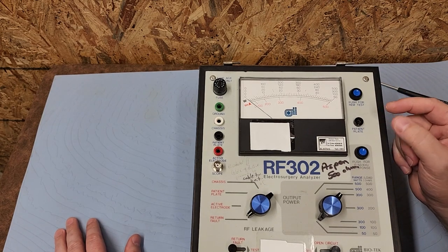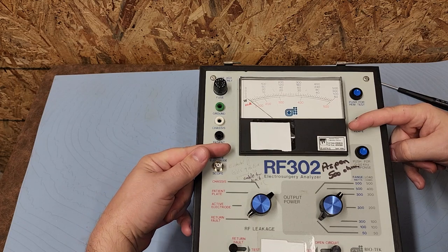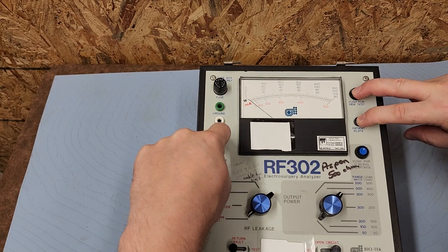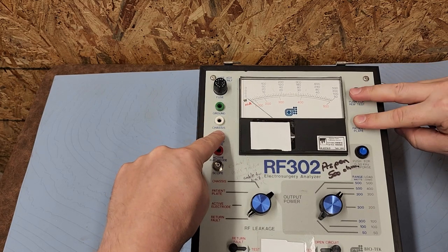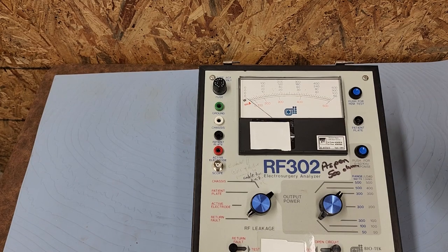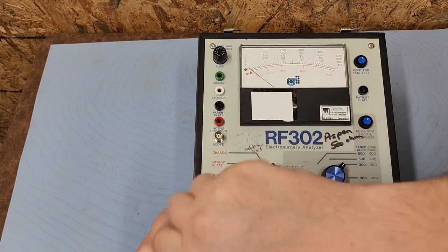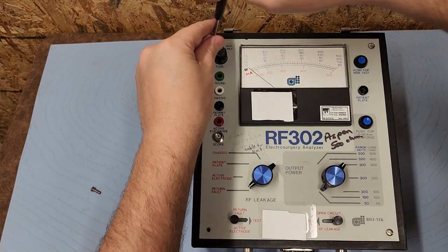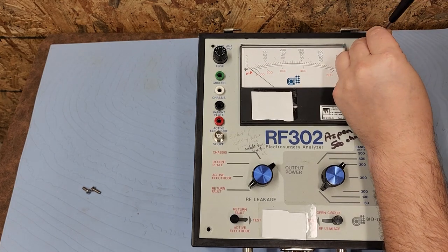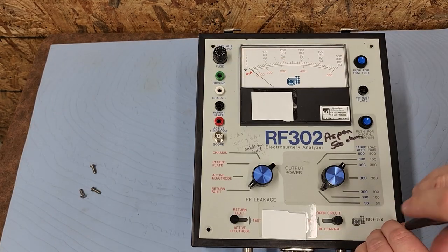I would assume you measure watts from the patient plate to your active electrode across the meter. For the REM test, I wonder if you go from the patient plate and depress this button and it switches from active electrode to patient plate. Not completely sure — I've been a biomed for 20 years and this is really interesting. I guess I'll have to read the manual after all. Let's go ahead and see what's inside this bad boy.